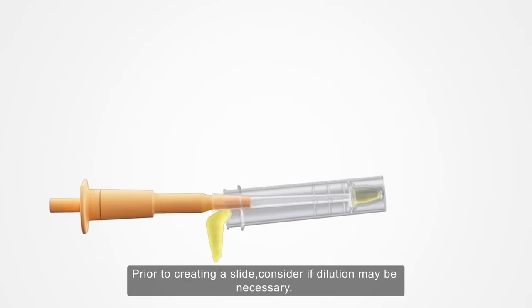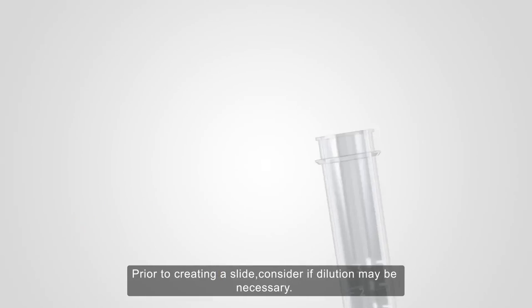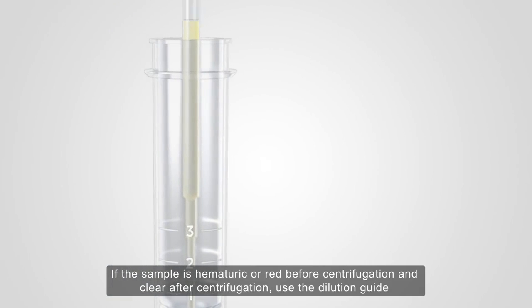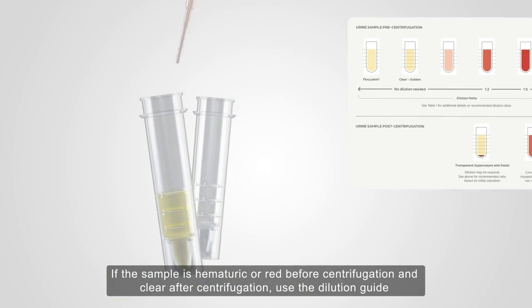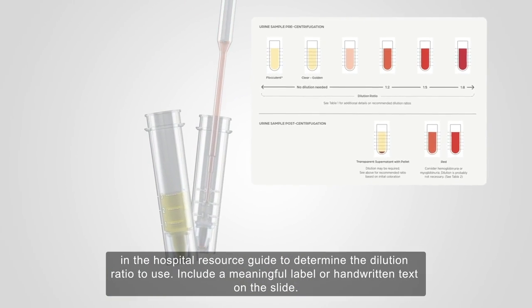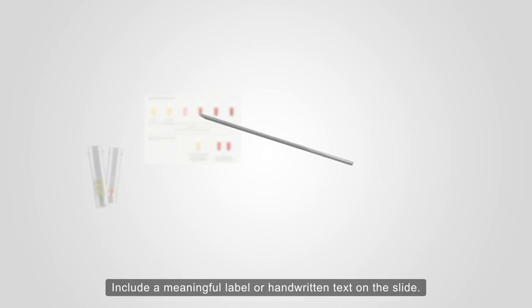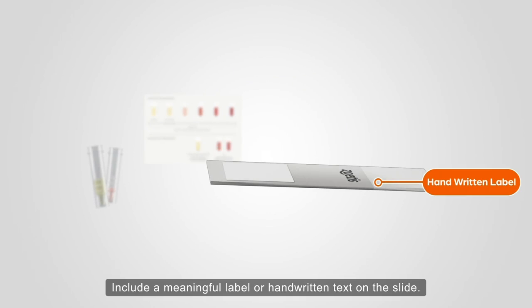Prior to creating a slide, consider if dilution may be necessary. If the sample is hematuric, or red before centrifugation and clear after centrifugation, use the dilution guide in the Hospital Resource Guide to determine the dilution ratio to use. Include a meaningful label or handwritten text on the slide.